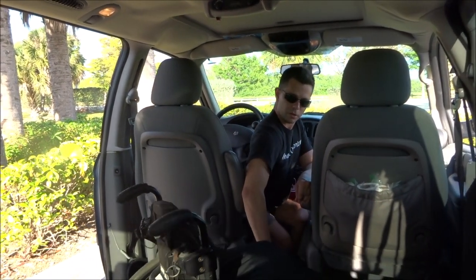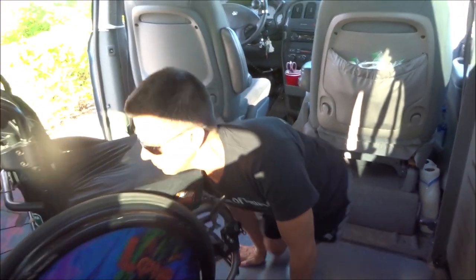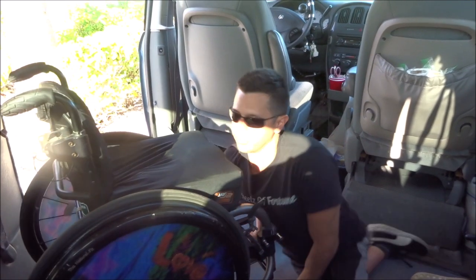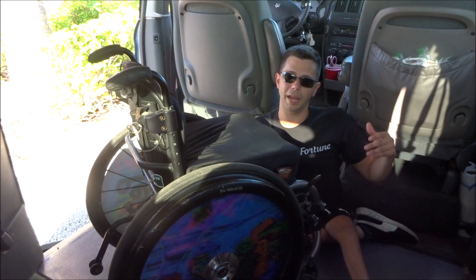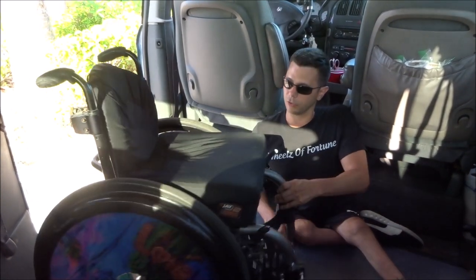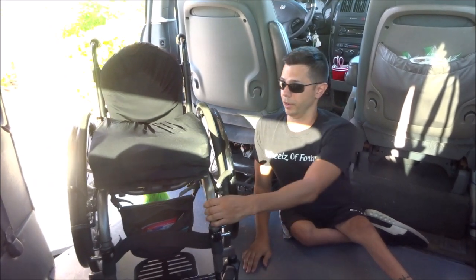So now I'm going to push my wheelchair back and get on the floor. Now keep in mind that this might not be possible for you if you maybe don't have the upper body strength that I do, or flexibility, or also if your wheelchair is bigger - if you have an electric wheelchair, this might not be possible. But then again, it might. This is what works for me, and I have had to do this on several occasions, so this is not just a demonstration of something that I've never done before.